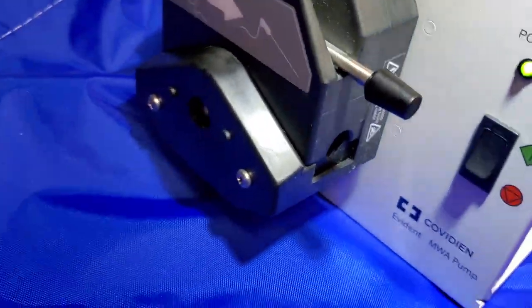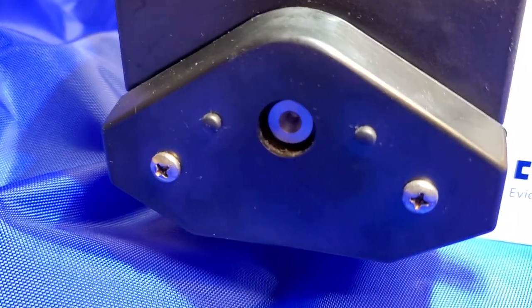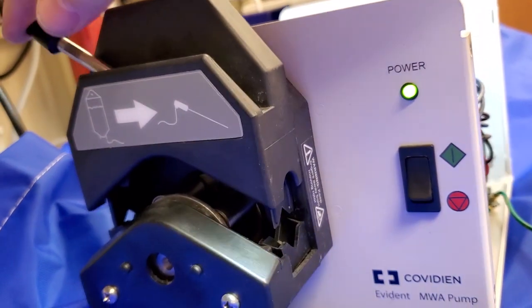As soon as it's closed, you can see that the motor is spinning right there. And when I open it, it stops.